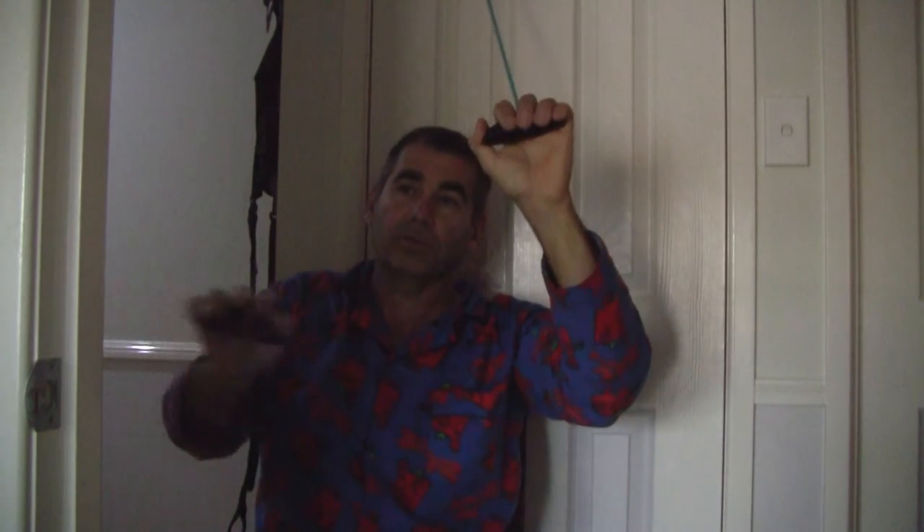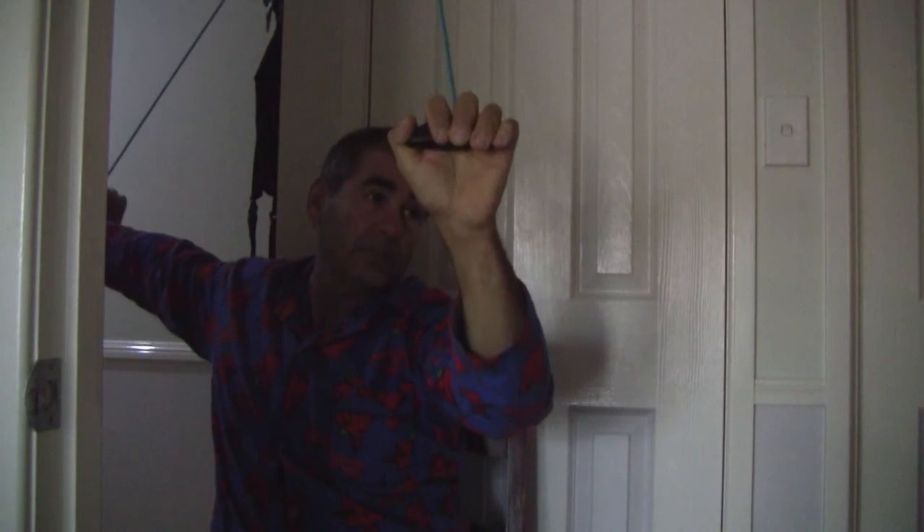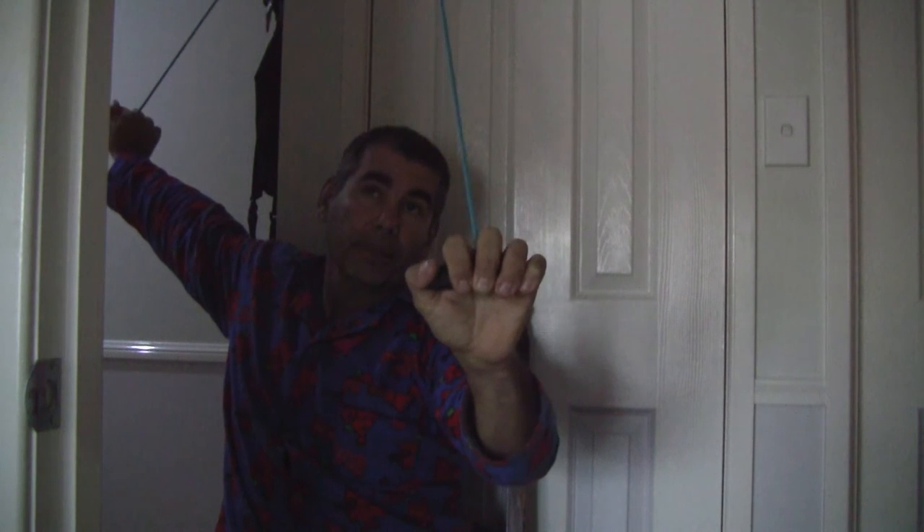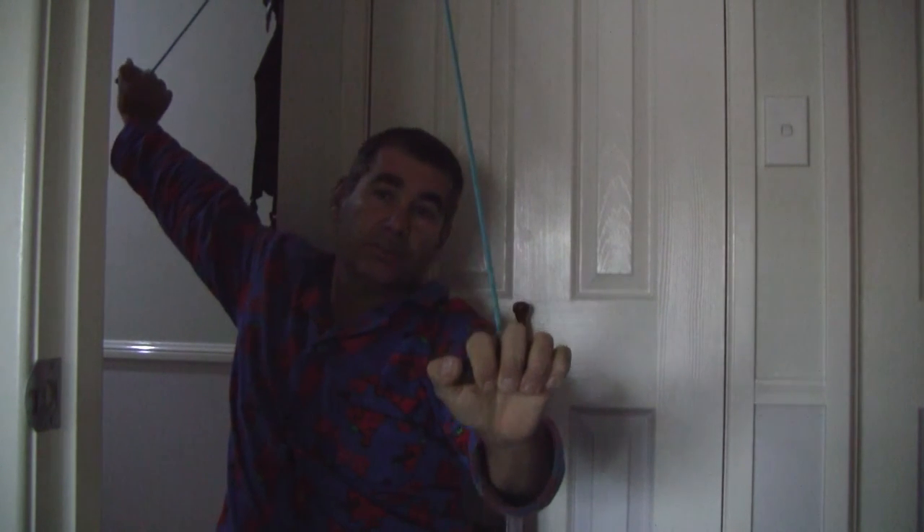Because I've got it right in the corner here, I now have to come right out to the side and bring it right round. I hold and I stretch. I just sit and watch TV and leave it stretching. I think this is the secret.